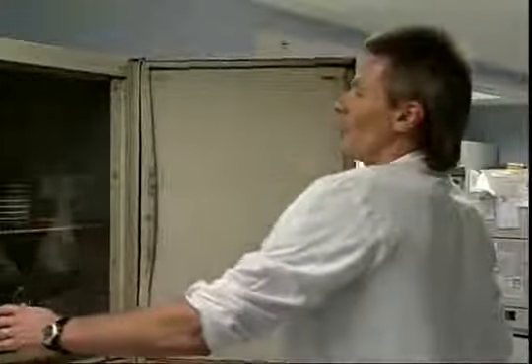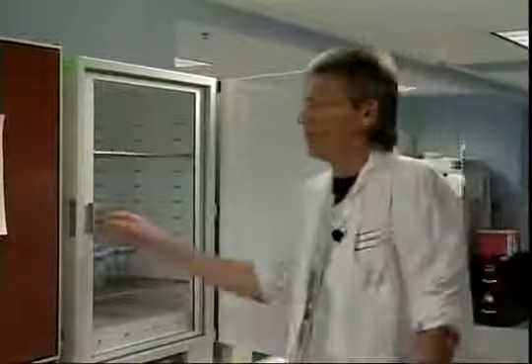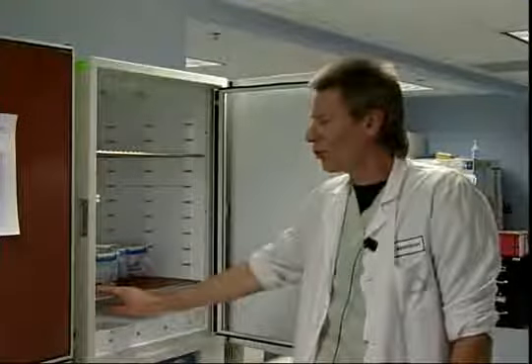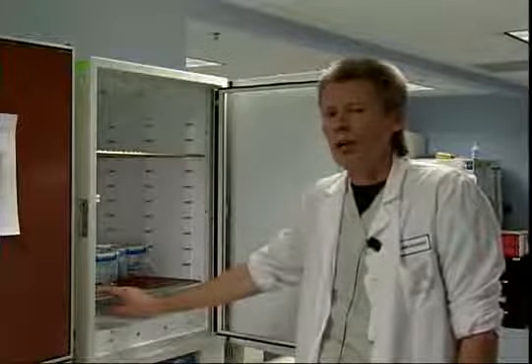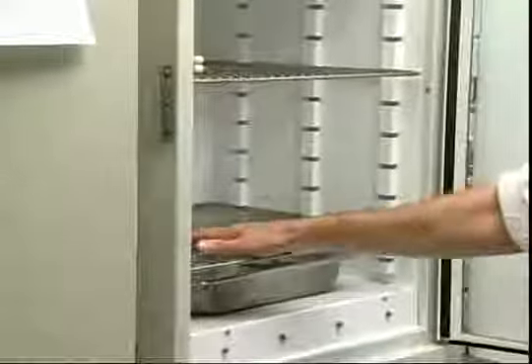We do have a 42-degree incubator for a specific organism called Campylobacter. You've probably heard of that. It's an enteric pathogen, and it's grown at 42 degrees because, number one, Campylobacter prefers it a little bit warmer, and also 42 degrees inhibits all the normal flora that would normally be found in the stool. And we also have a 30-degree incubator, and this is used specifically for yeasts. It's a little bit cooler, and it seems some yeasts prefer 30 degrees to grow. So with this 30-degree incubator, the 42 and the 37, we can meet all the temperature requirements of any bacteria that might cause infection in your patients.